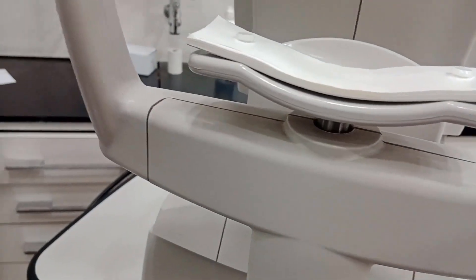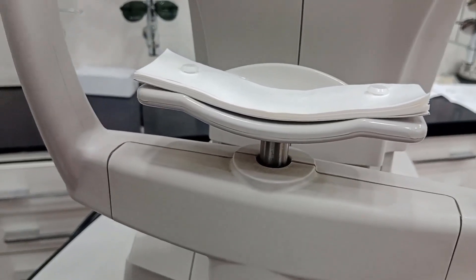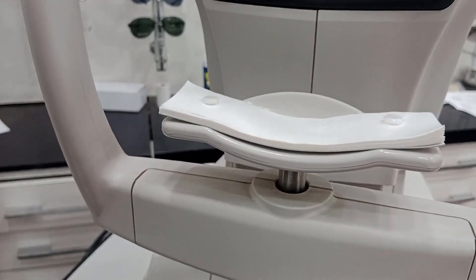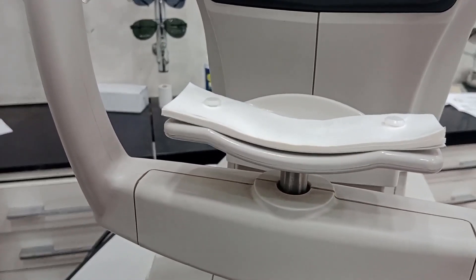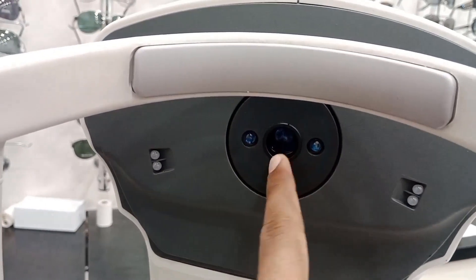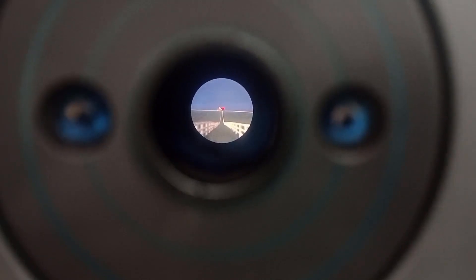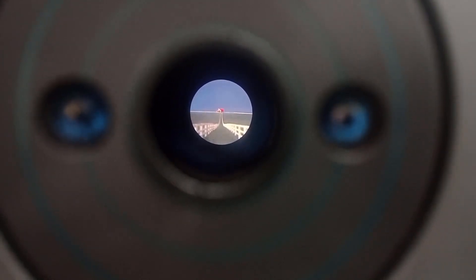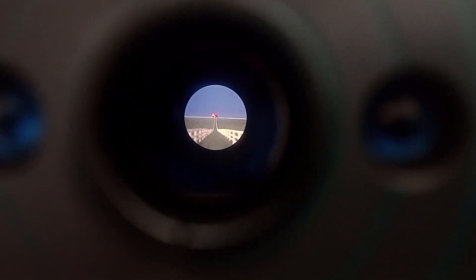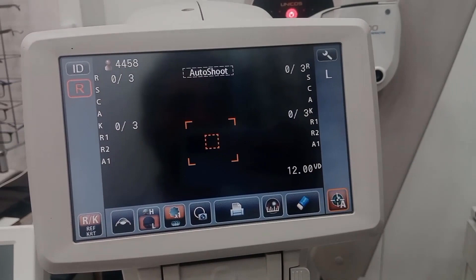By rotating the knob, the chin rest moves upward and downward. This hole is called the measuring window — the patient looks inside, and the view is like a house far away.